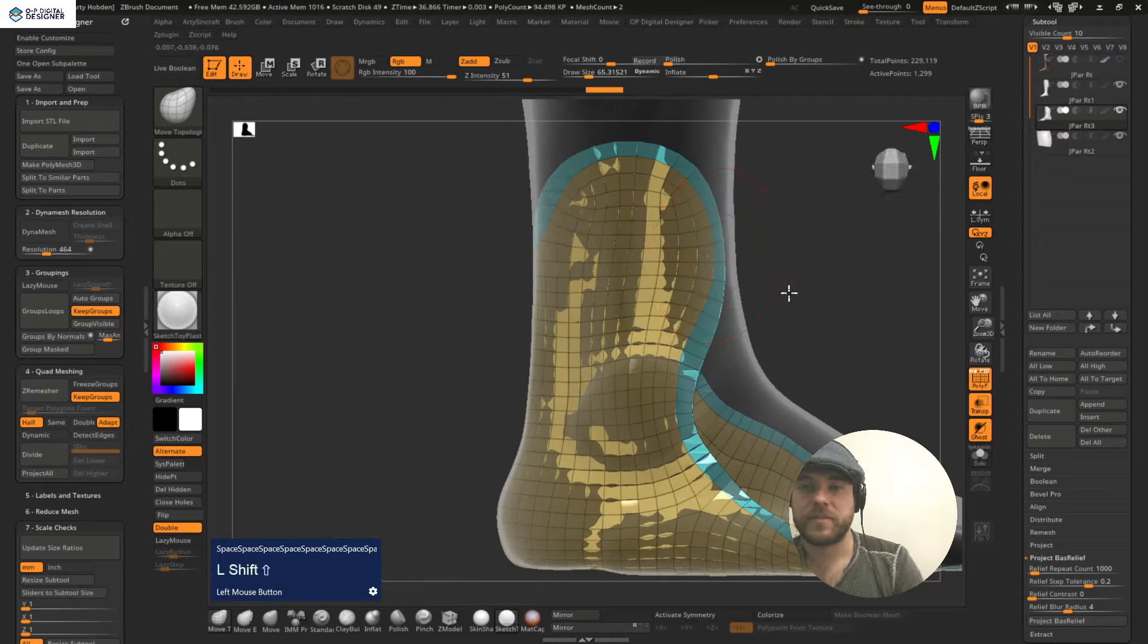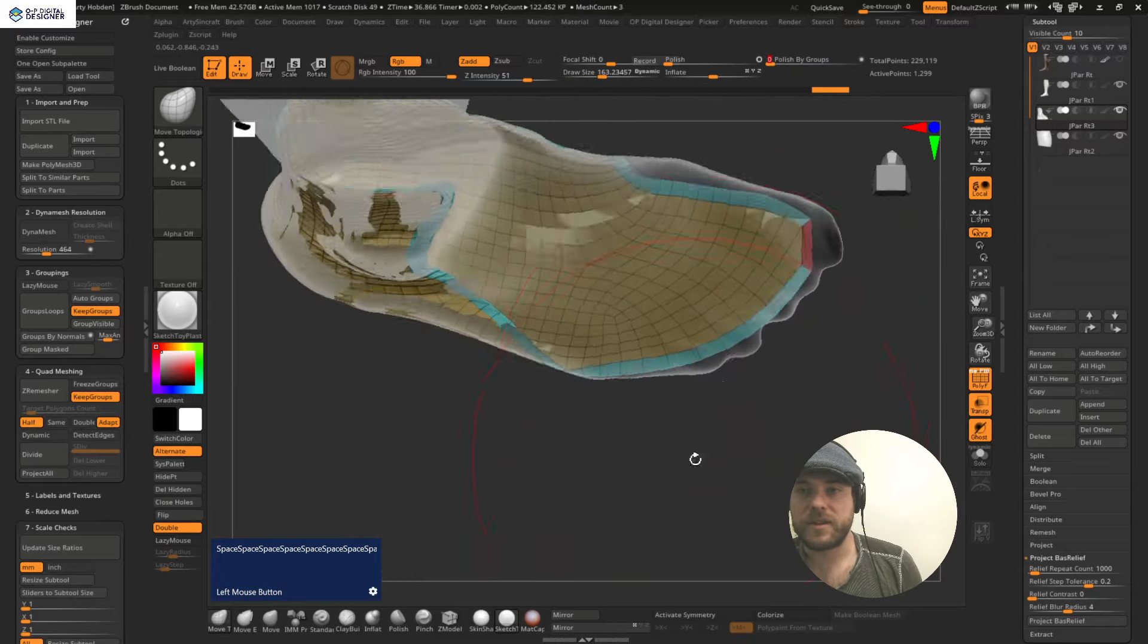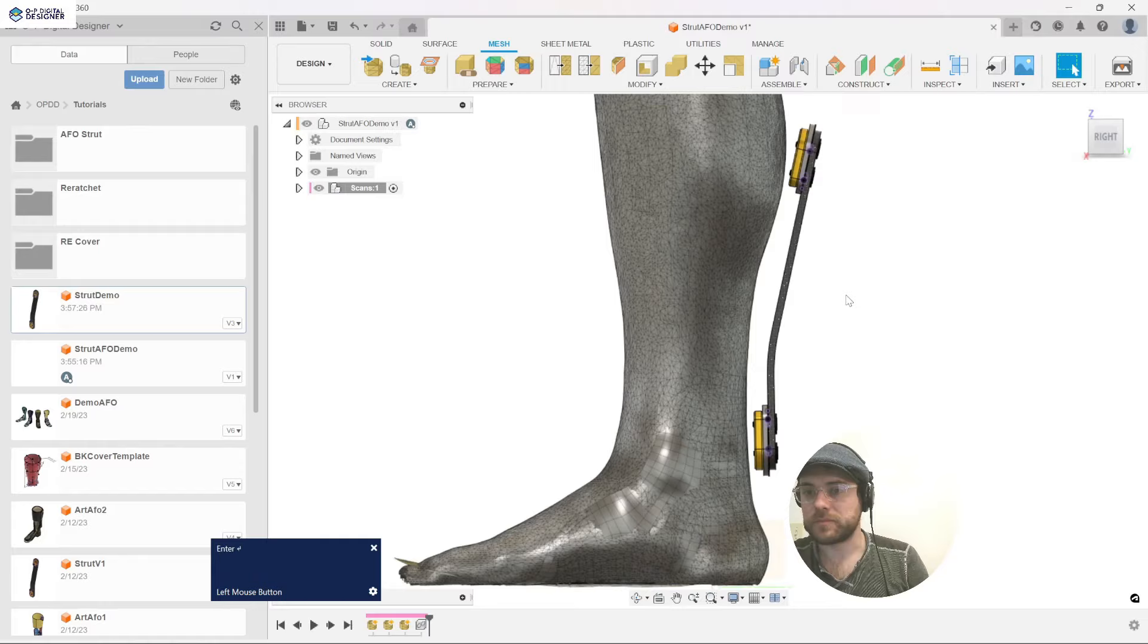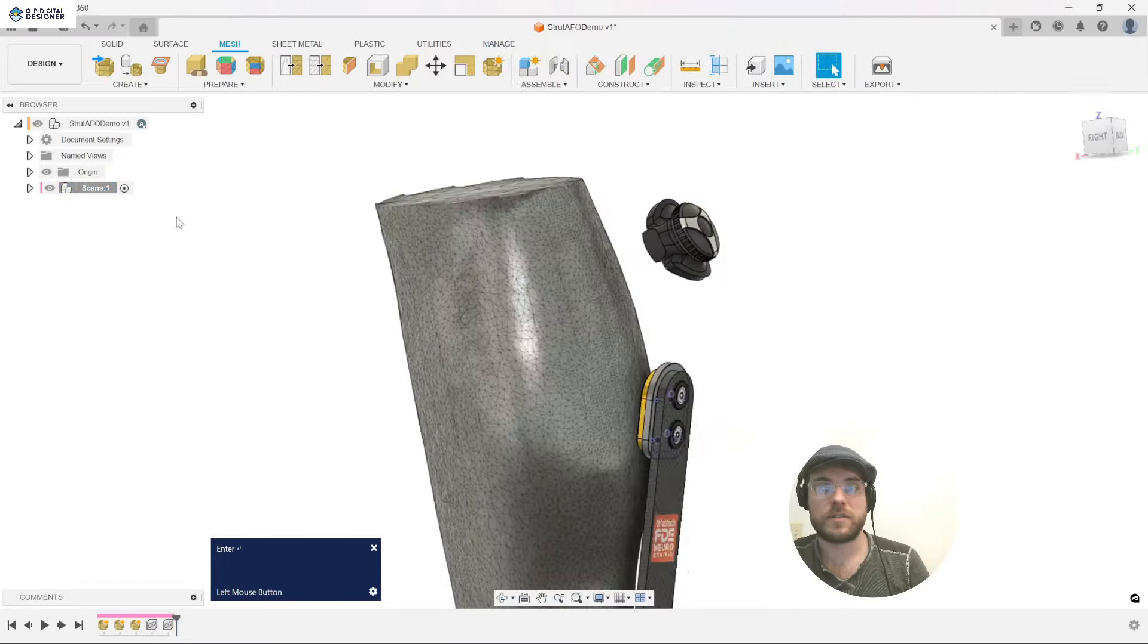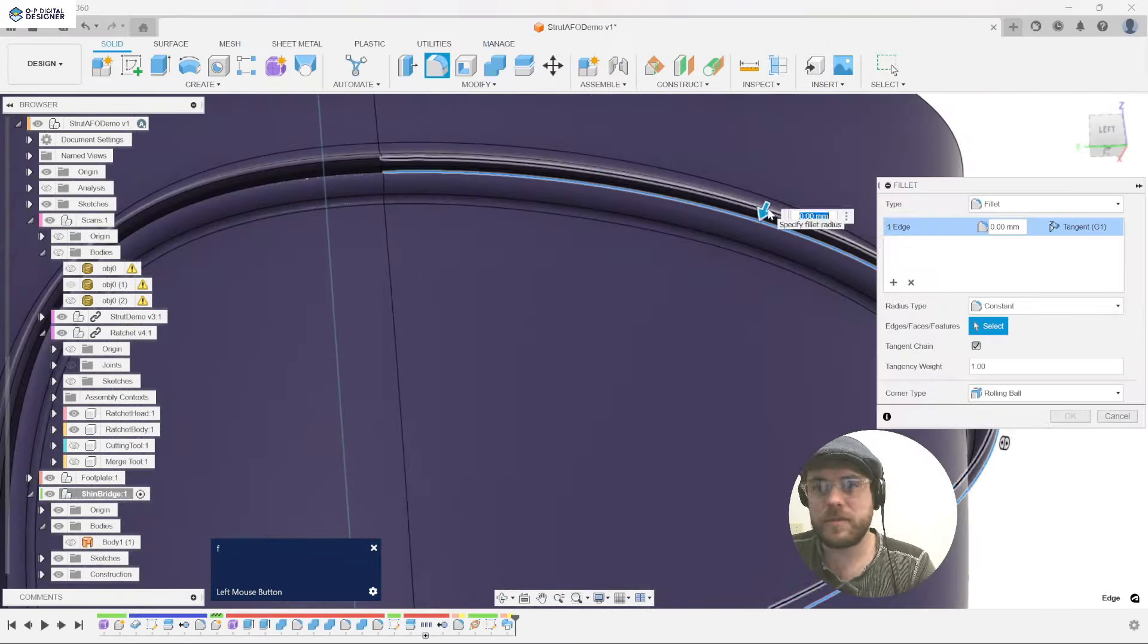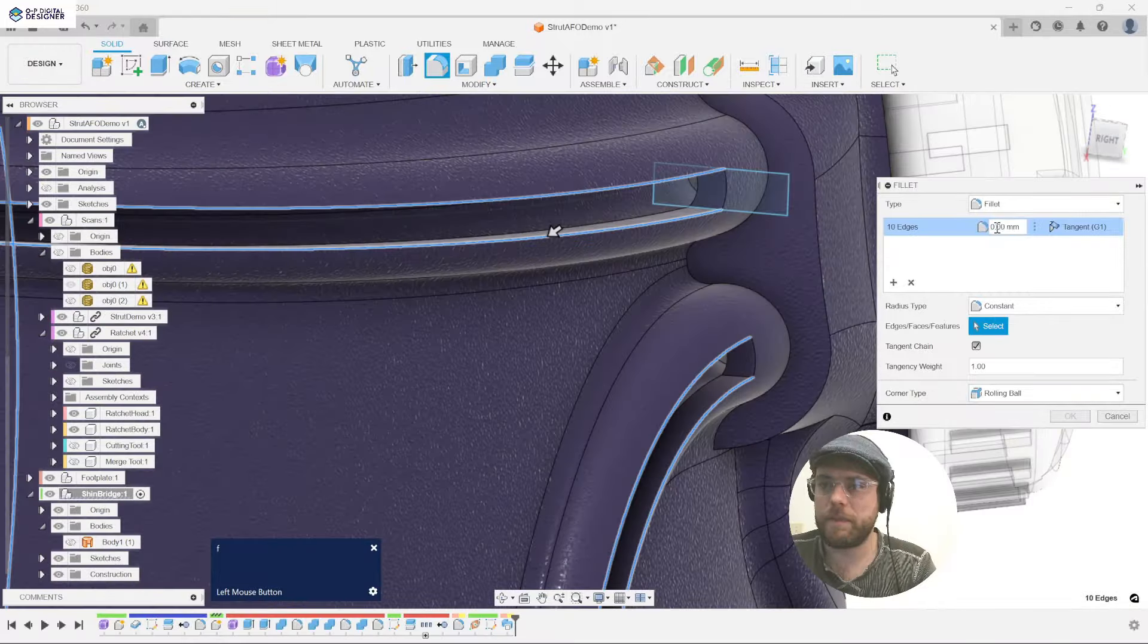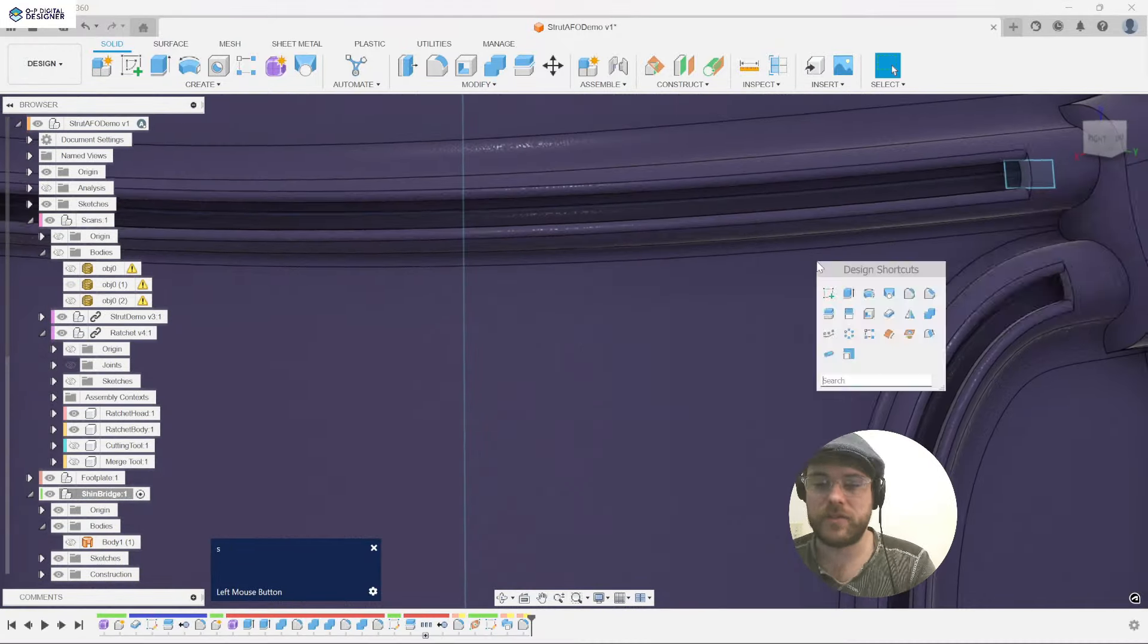We showcase how to create complex trim lines, ascribe clinical modifications, align strut and strap hardware and, excitingly, how to map a boa ratchet cabling system around and directly into a 3D printed final form.